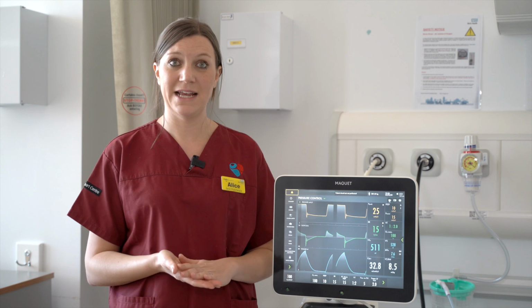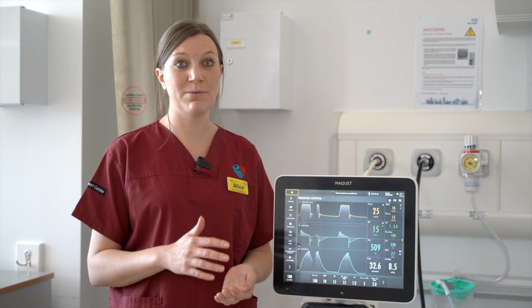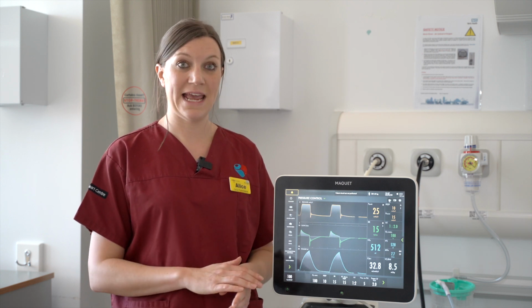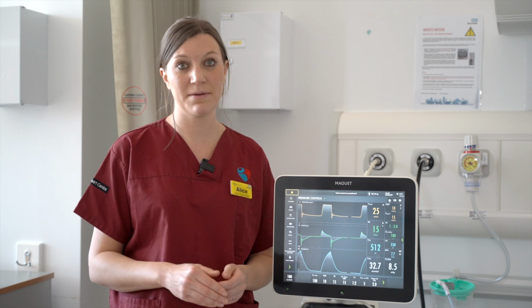Your next mode of ventilation is an interactive mode of ventilation, which on these ventilators is known as synchronized intermittent mandatory ventilation, SIMV, and we use SIMV pressure control or SIMV pressure regulated volume control. What this mode of ventilation means is that the patient is able to interact and trigger the ventilator more. The ventilator still provides a set respiratory rate, but the patient is able to trigger their own breaths.